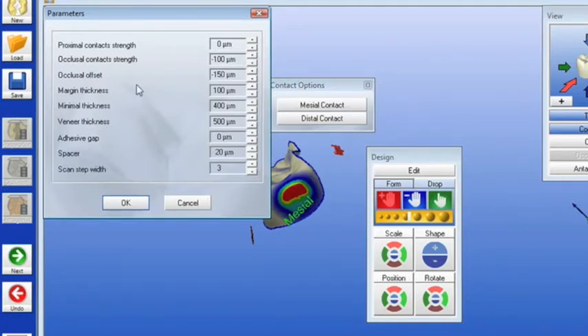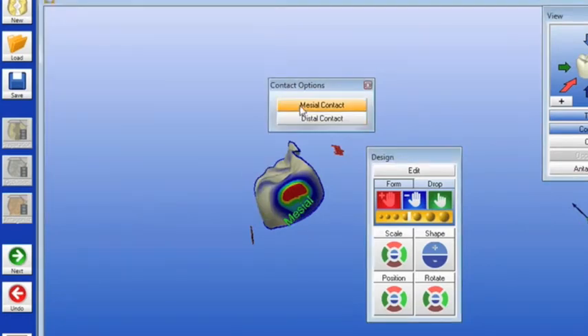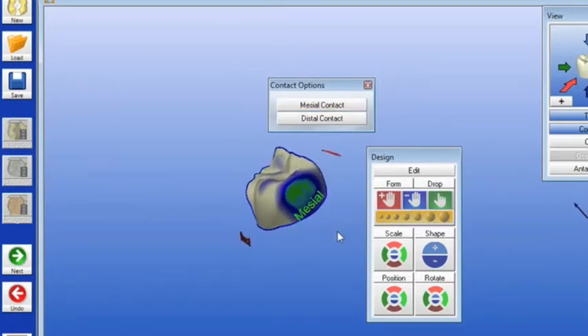In my computer, that's a light green on top of the light blue speckle. I know that's going to drop in nine out of ten times, particularly if I prepared my clinical teeth and proximal contacts right. So if it's a full crown, you do your mesial and your distal contacts.